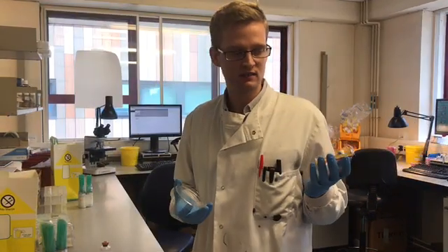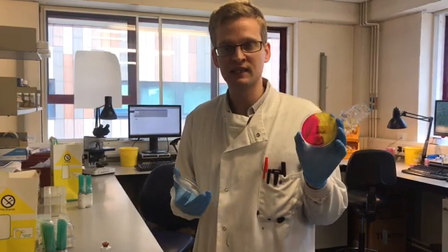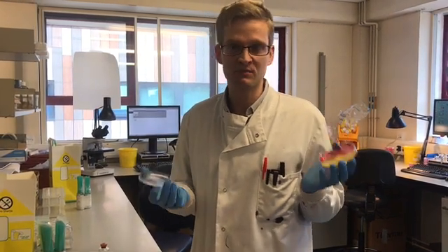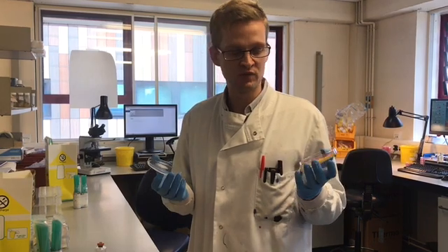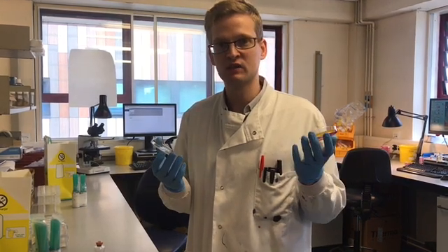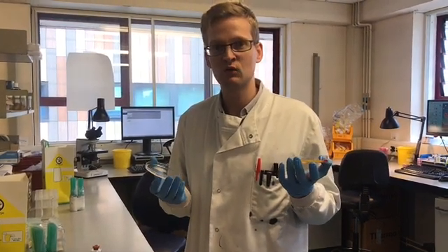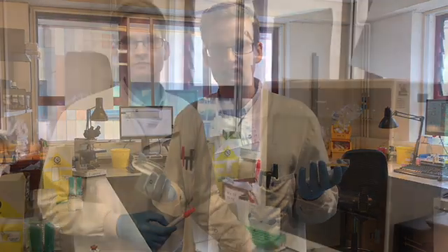Once we've cultured it, we will then begin to look at it, try to identify it, see if it is a pathogen or if it isn't a pathogen. Once we've identified it and we've got a pathogen, we can then use it for testing antibiotics.